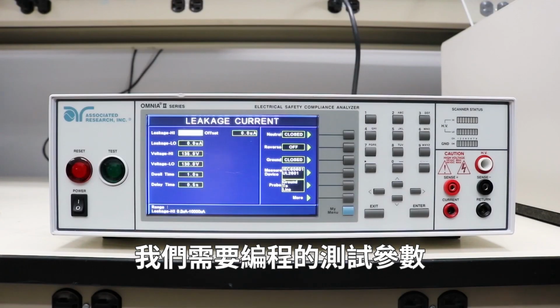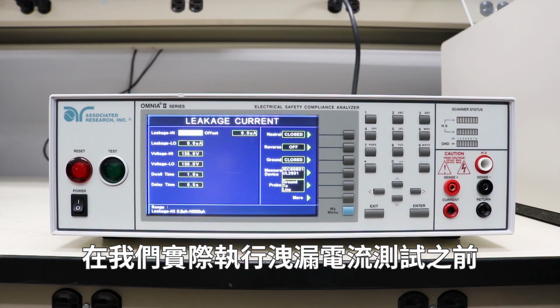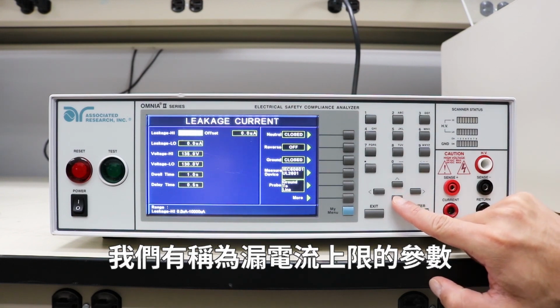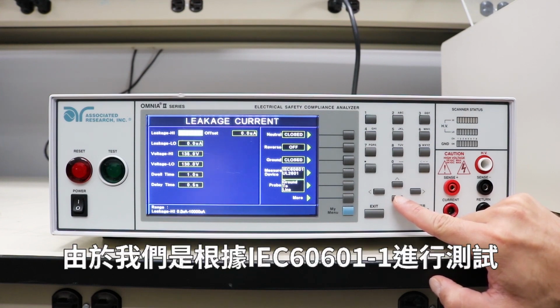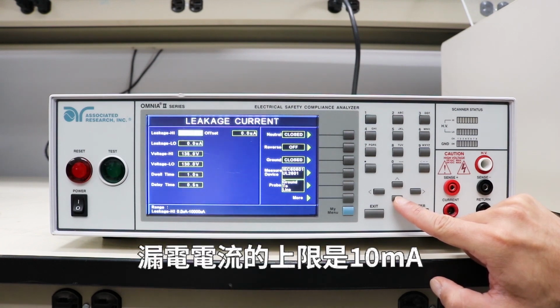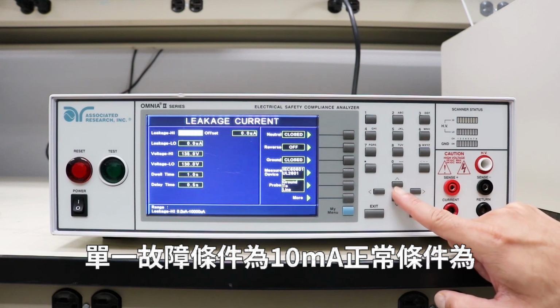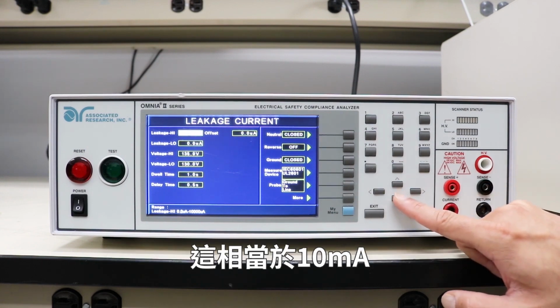Now we're going to go over the test parameters that we need to program before we can actually perform the earth leakage test. Starting with the first test parameter, we have what's called leakage high. This is the maximum allowable leakage current per the test standard. Since we're testing according to IEC 60601-1, the high limit for the leakage current is 10 milliamps for single fault conditions and 5 milliamps for normal conditions. So we're going to leave that at 10,000 microamps, which is the same as 10 milliamps.